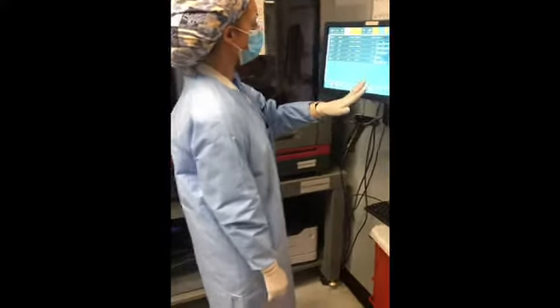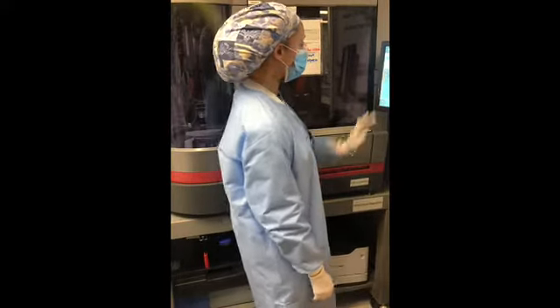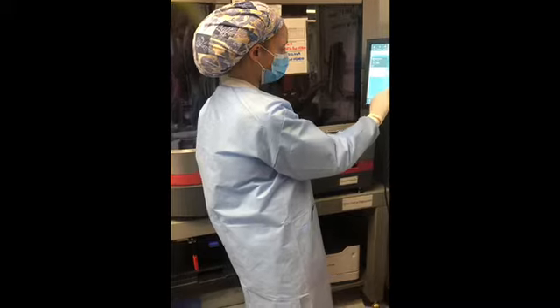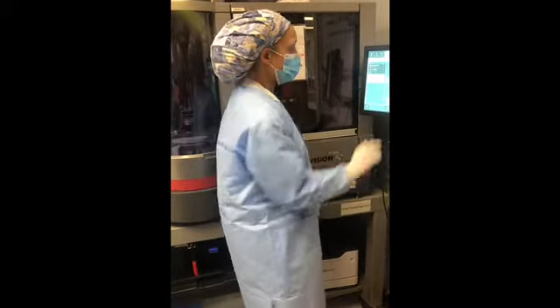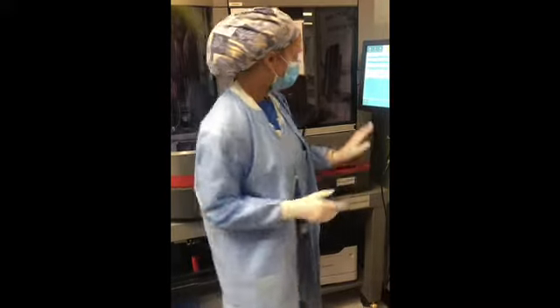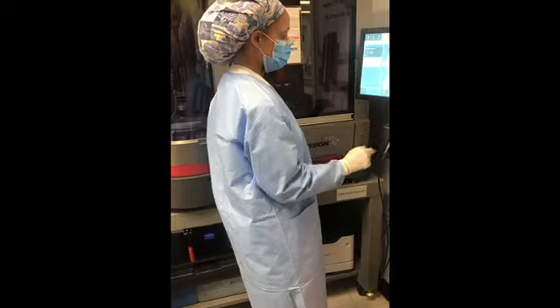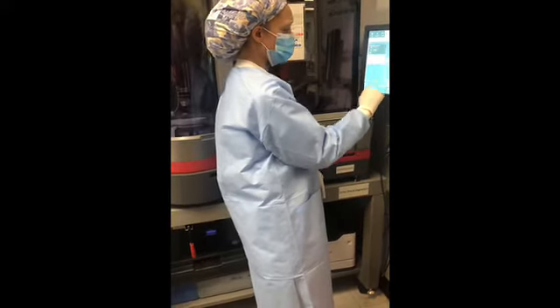Okay? So if you get a question mark at any point, say I got a question mark on the screen right here, you will pull it up and look at it. If it looks negative, you'll go ahead and click on Edit Grades. You will change the result to negative.